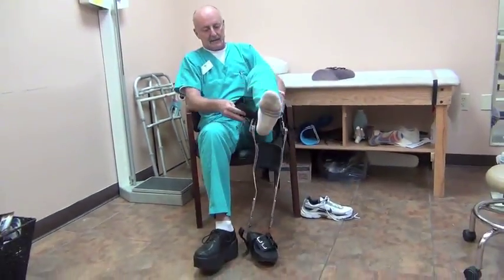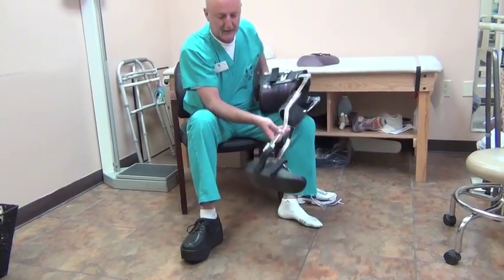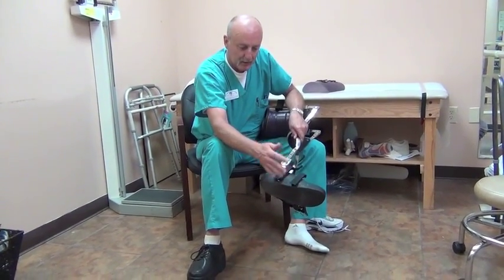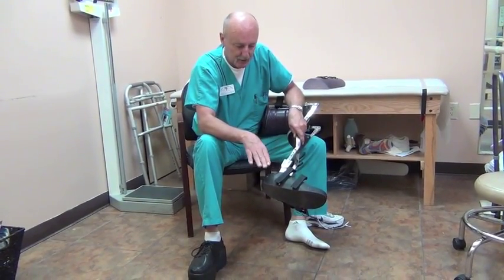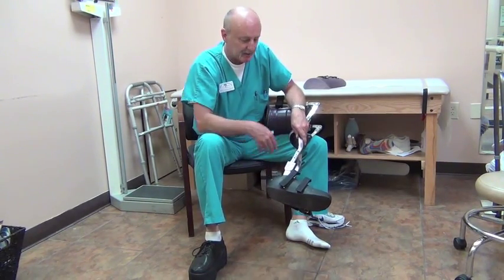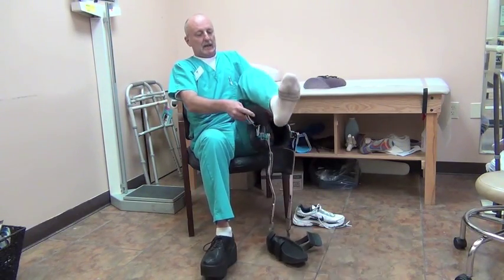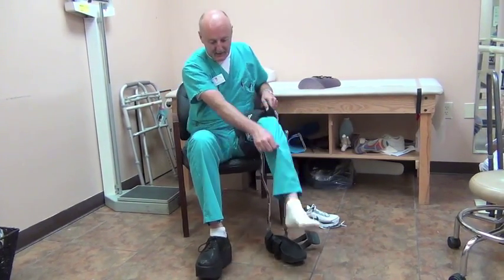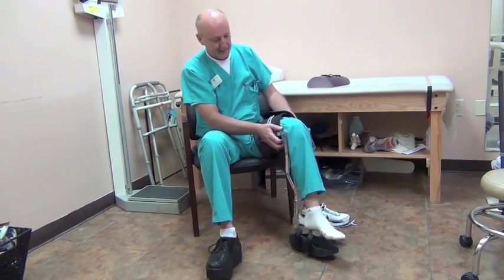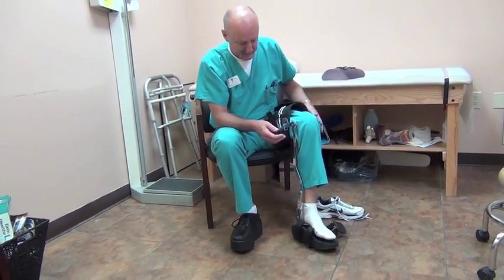Putting it on is really quite simple. In my design, I'm not using a shoe. Normally, this would be a carbon footplate — these straps wouldn't be here — and it would go inside a shoe. For demonstration purposes, so that you can see that there's actual unweighting of the leg, I've basically taken that carbon footplate and covered it and just made it a walking base.